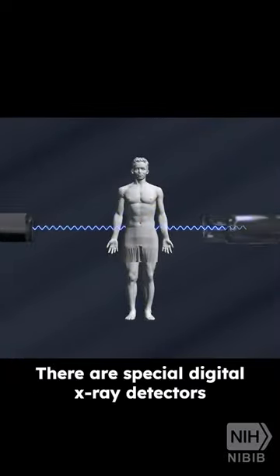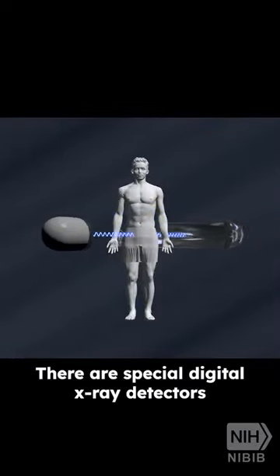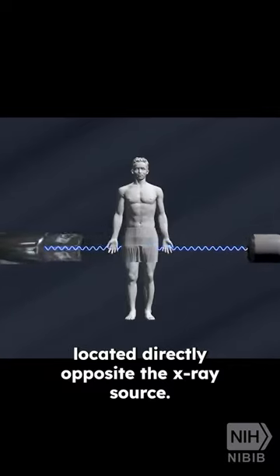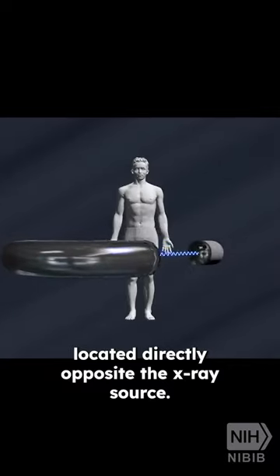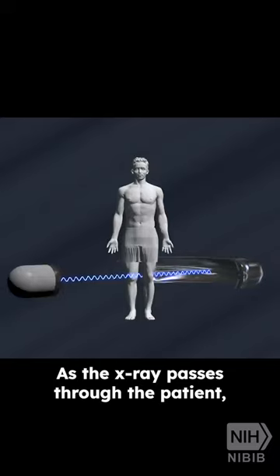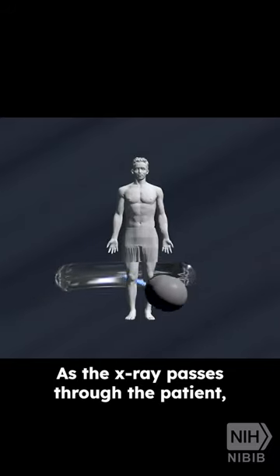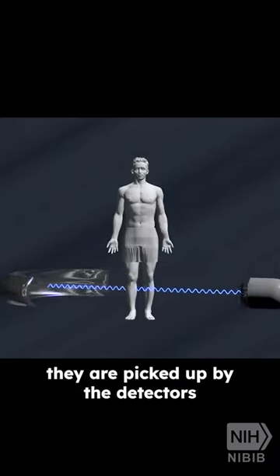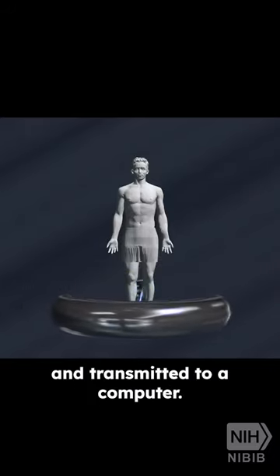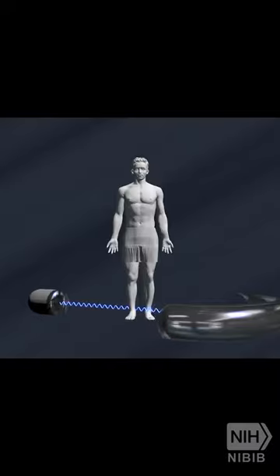There are special digital x-ray detectors located directly opposite the x-ray source. As the x-rays pass through the patient, they are picked up by the detectors and transmitted to a computer.